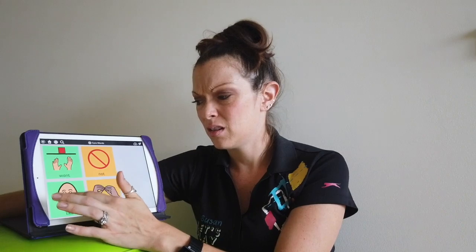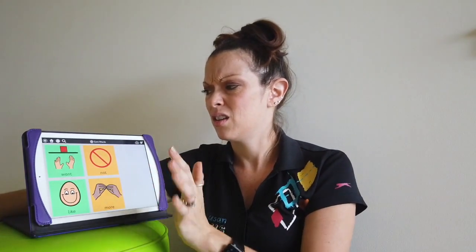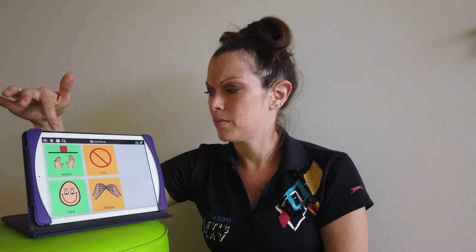So that way, again, now that's pretty high level. It would take a lot of prompting, I would think, to get some of my kiddos to communicate that full entire sentence, but they're capable of doing that with the right modeling. And a lot of times they're definitely able to do that with their gestures. They're able to communicate that. So it's important we support that. We see that that's what they're trying to communicate. So we model it in here. Not like. Not more. No more bubbles. Let's do ball.